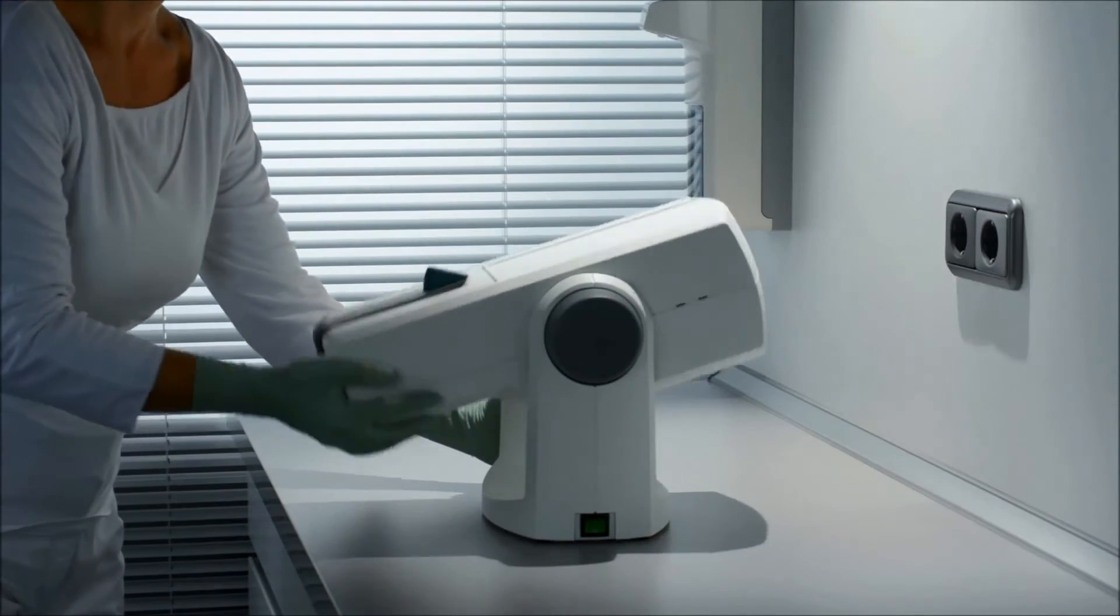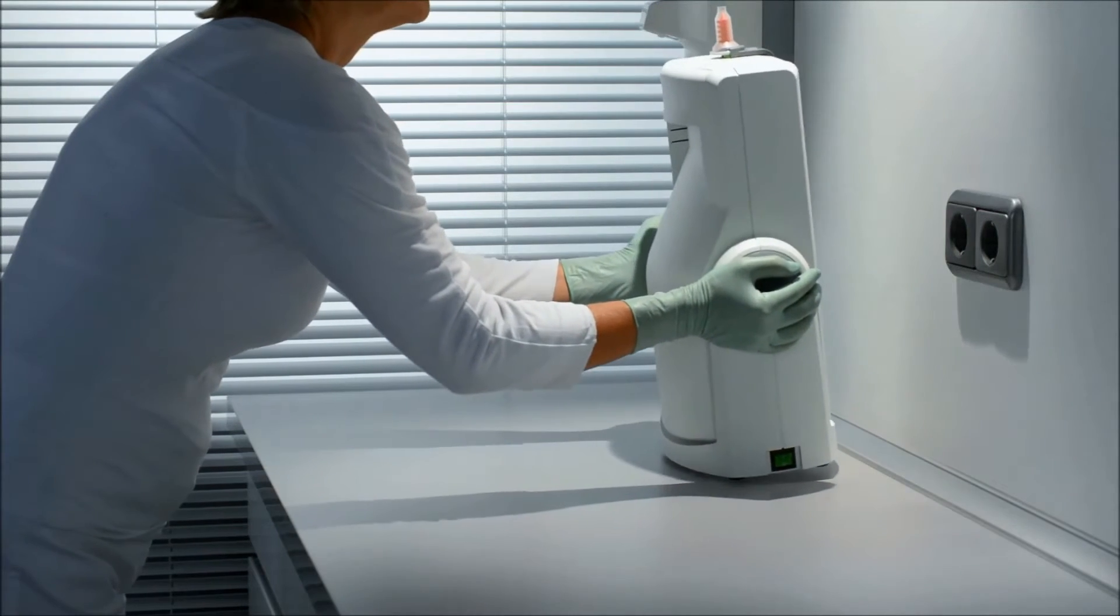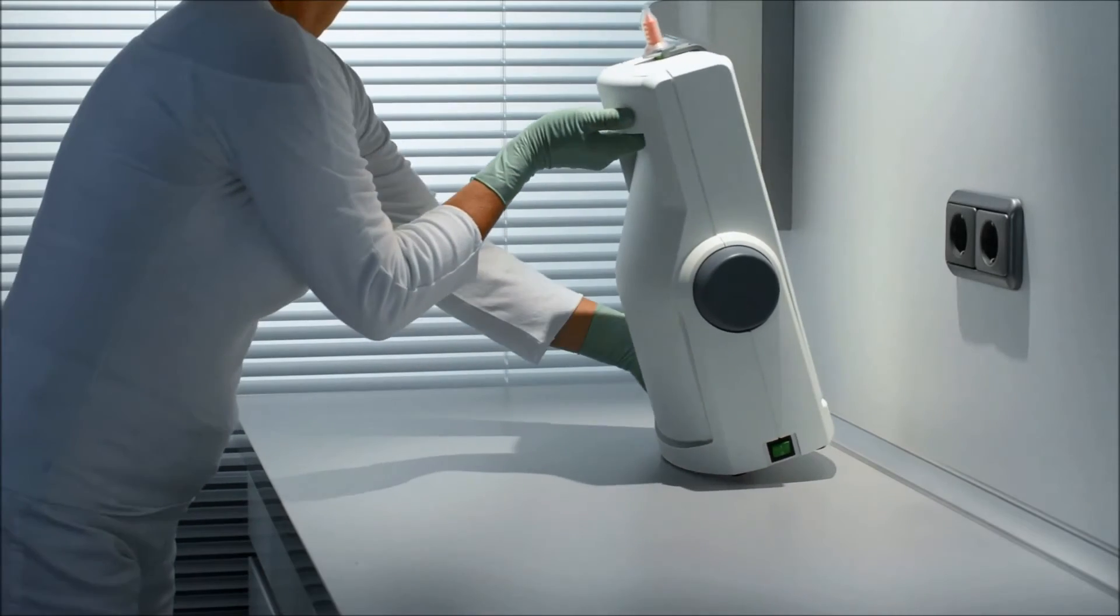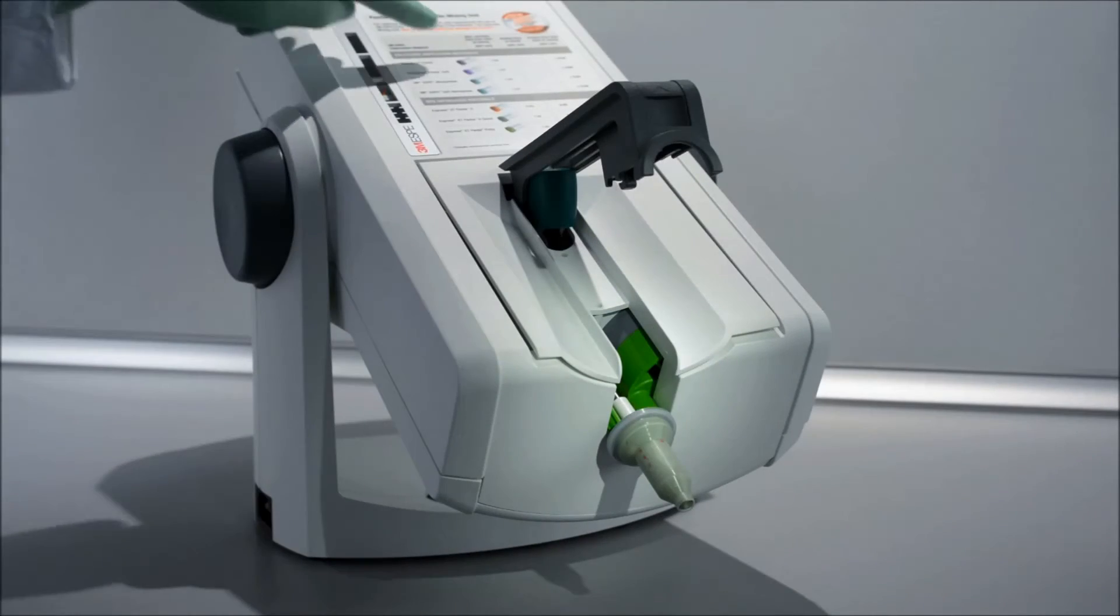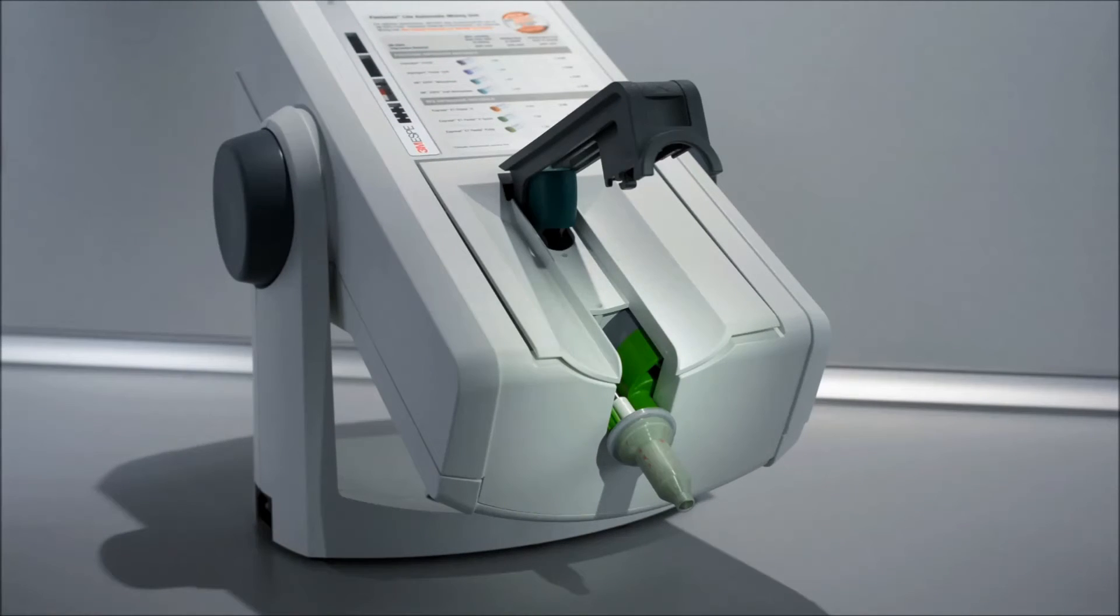It saves valuable space with a compact design and an upright standby position thanks to its unique swivel design, and it's easy to carry from operatory to operatory with its lightweight and integrated handgrip. A sticker gives you an overview of all 3M ESPE impression materials with working and setting times.